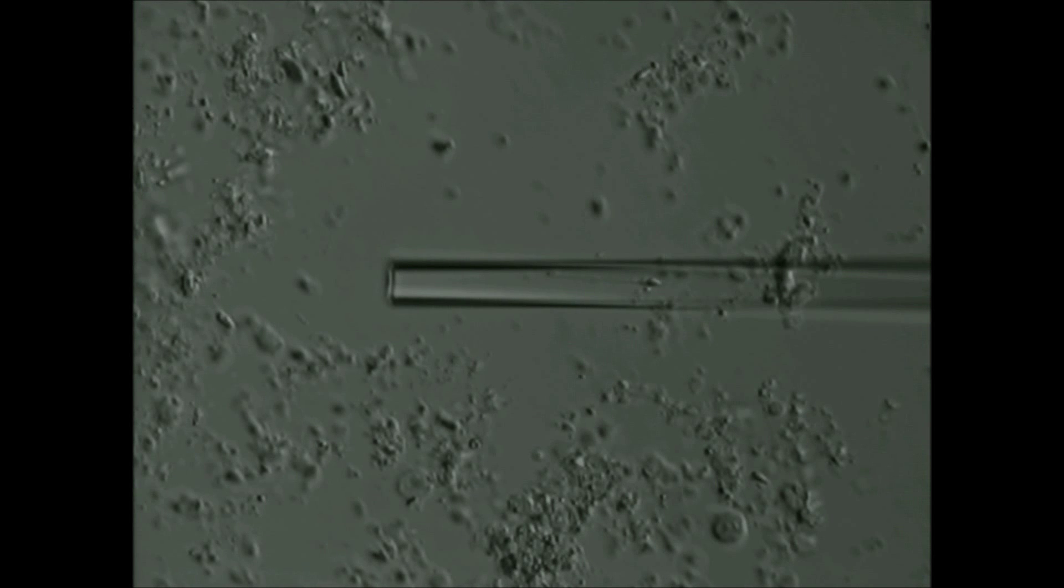This is a novel technique where individual testicular sperm are tested by the HOS test to determine if the sperm is alive prior to using it in ICSI to achieve fertilization.